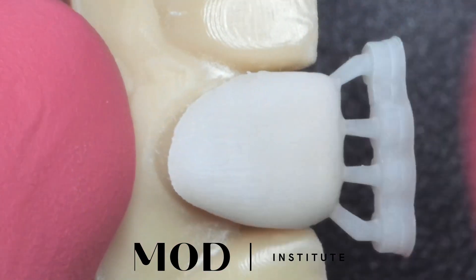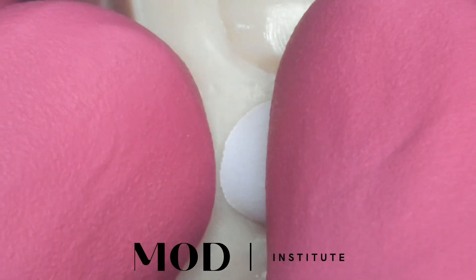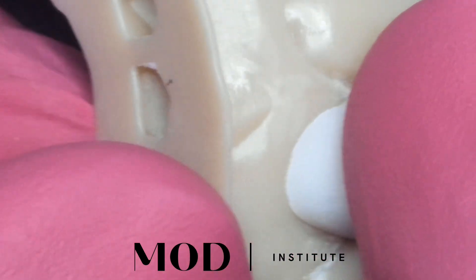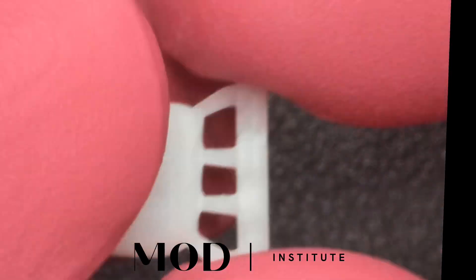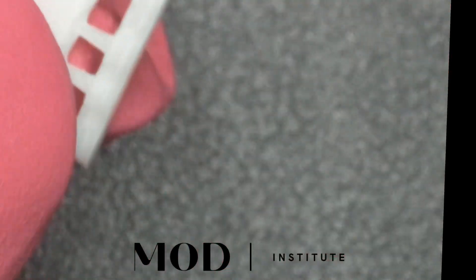So what is the secret to getting veneers ultra thin? First you want to print them at about 300 microns. That's about the thinnest you want to push the printers, because otherwise you start to get distortions, delaminations, and micro rips and tears.